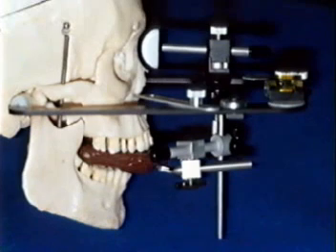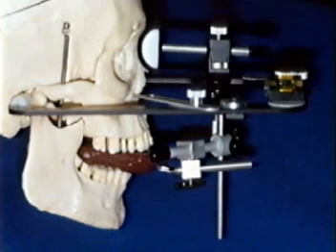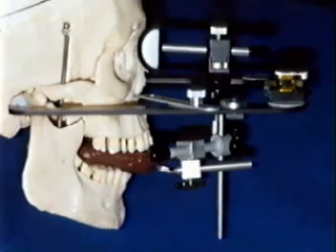Previous research has cited the inherent errors and complications of these procedures. Currently, all ear bow techniques transfer an arbitrary or average hinge axis location by referencing an approximation using the patient's ears. Mathematically, although imprecise, this approximation is within an acceptable range for dental articulation, especially when minimal to moderate changes are necessary in the dentition. There are greater concerns, however, when the occlusal vertical dimension needs to be altered.